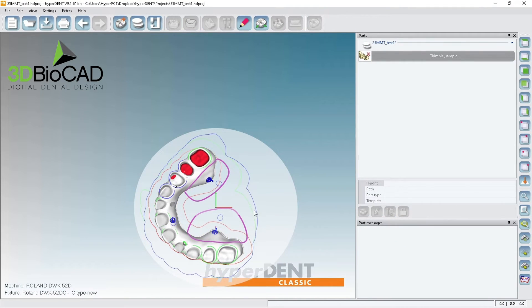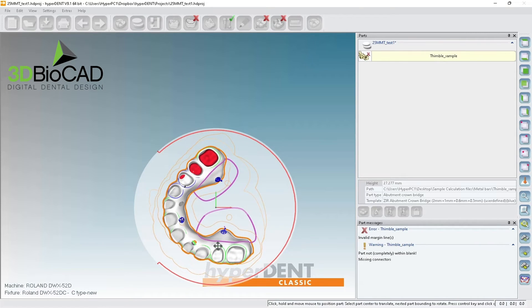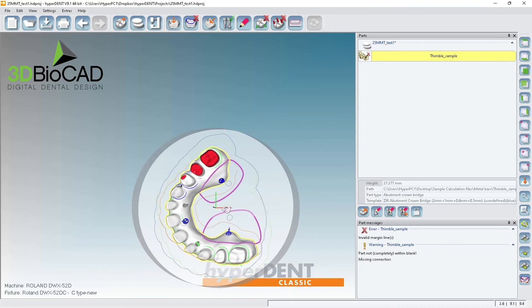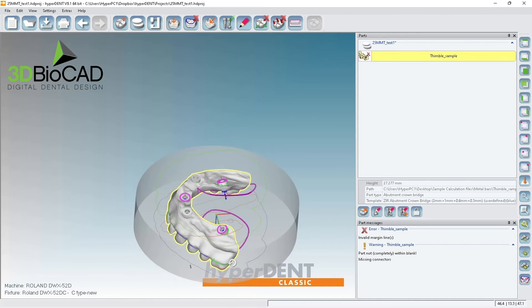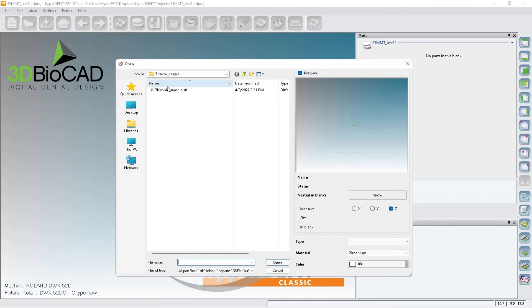If we do this, you can see the boundary gets so much bigger. But we don't have a place to put connectors, so our only choice is putting the connectors on the facial side. The computer will have enough space to mill this channel and this channel too. I just want to show you some different types of applications.